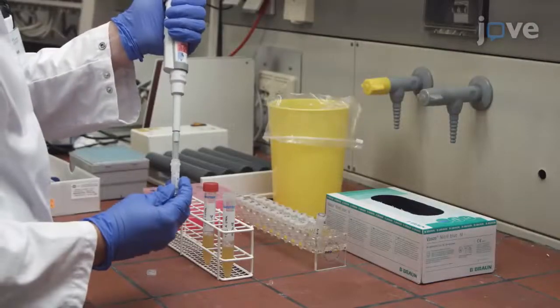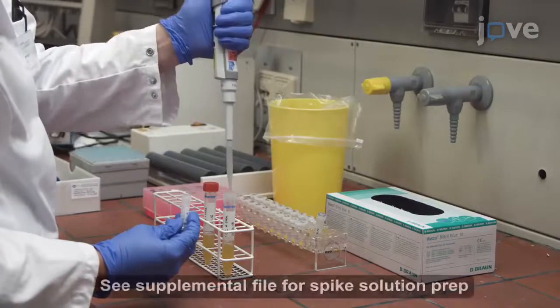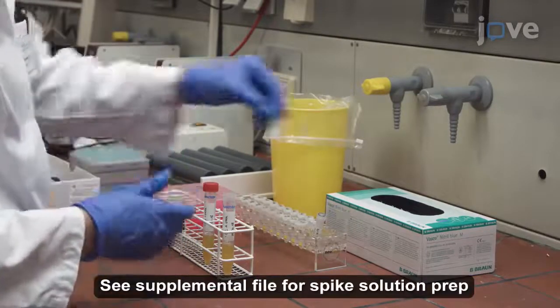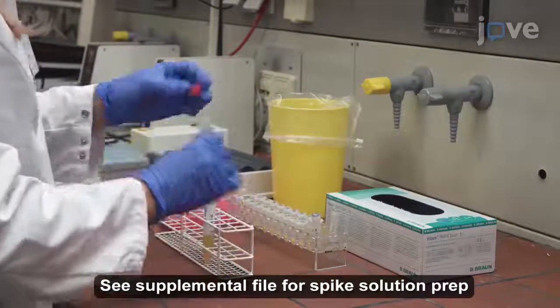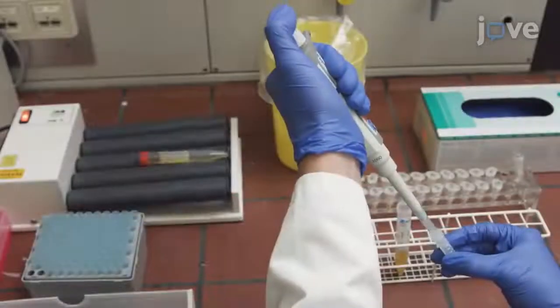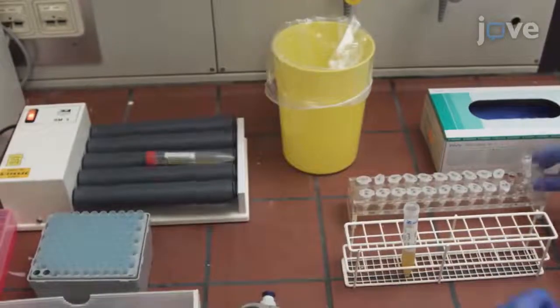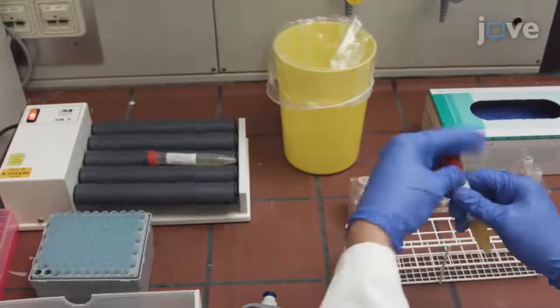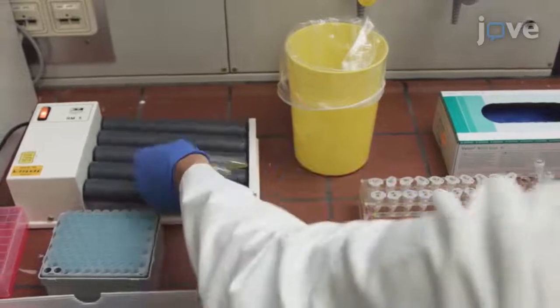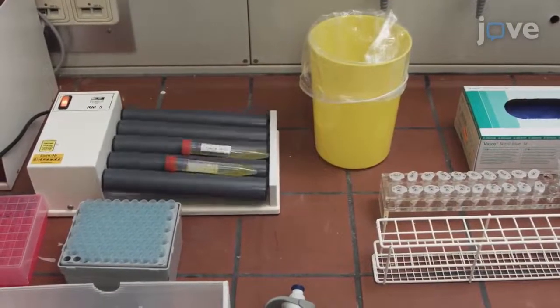First, spike 9 volumes of drug-free serum with 1 volume of previously prepared 10-fold concentrated spike solutions to obtain the serum calibrators 0–7 and quality controls A–D. For example, add 0.5 milliliters of spike solution to 4.5 milliliters of serum in a 10-milliliter polypropylene tube and incubate for 15 minutes at 4 degrees Celsius on a roller mixer at 50 RPM.